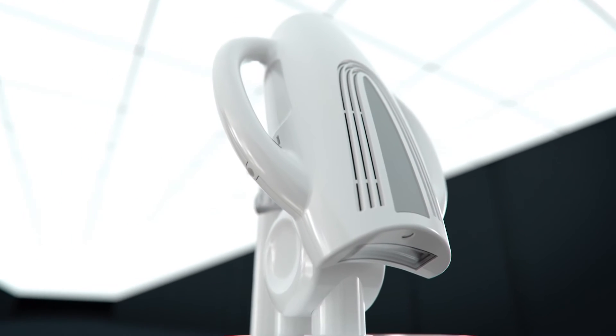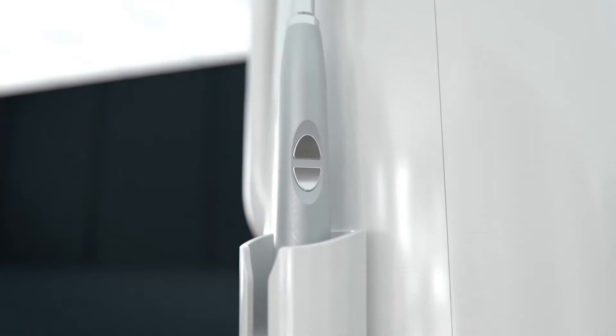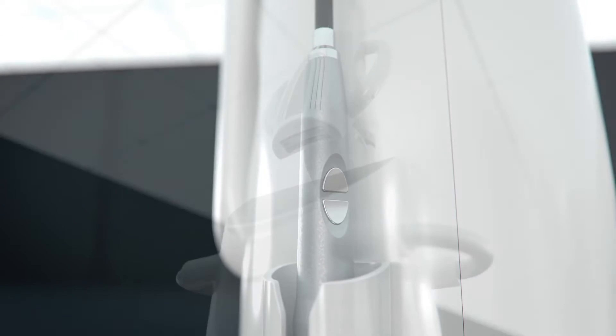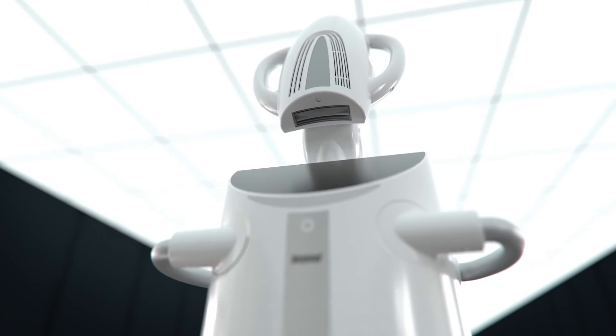The multifunctional system includes light bridge acceleration, new ultrasonic technology, and an LED curing light. The dual arch power whitening option with high, medium, or low settings provides treatment suited to each individual patient.